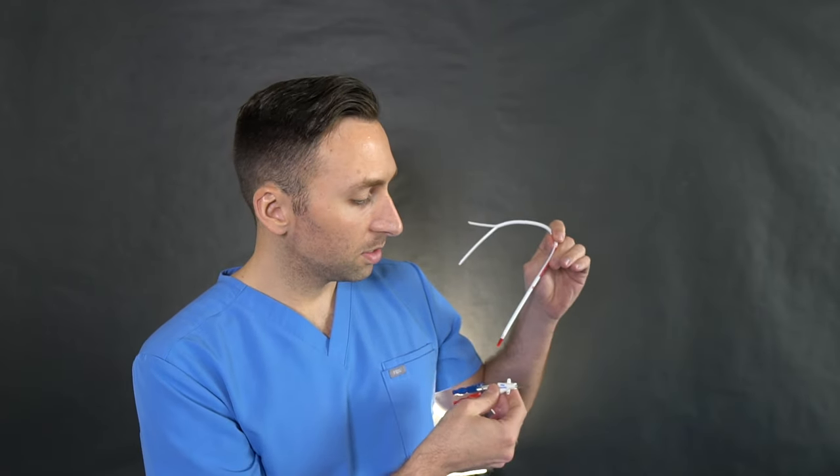Let's open this up and see what's inside. As you can see, the catheter actually comes separate — we have to put this together and cut right here, and scissors are usually provided on the table. So let me walk you through this. The first thing we would do is use our ultrasound machine and take a small needle — as you can see right here, this is an 18-gauge needle. We usually access with a 21-gauge micropuncture needle.